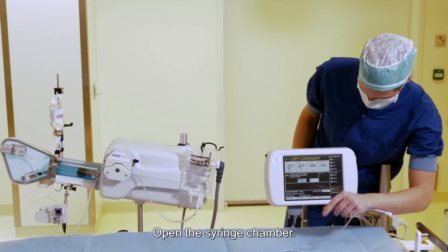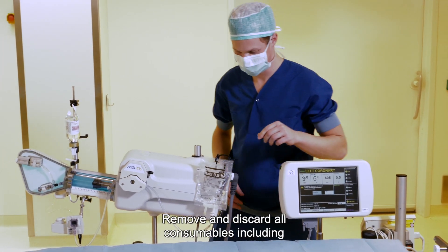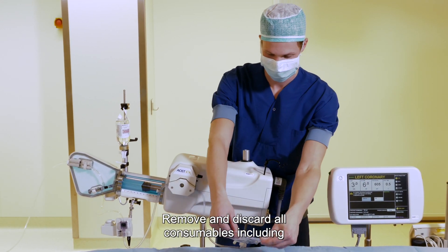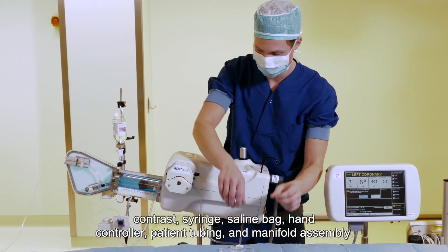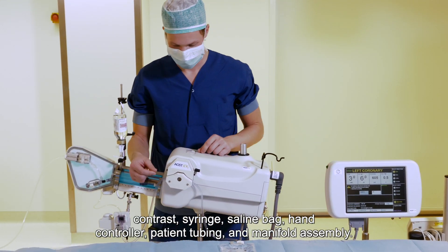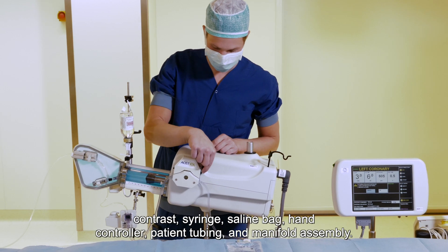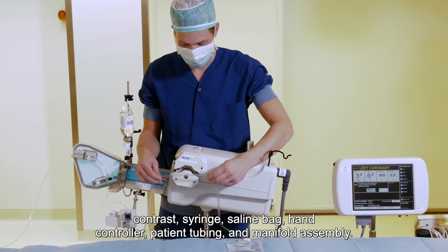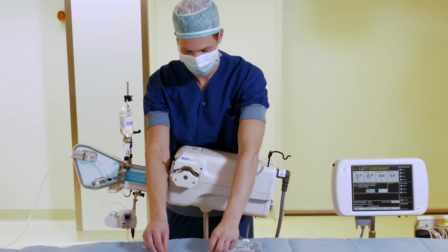Open the syringe chamber. Remove and discard all consumables including contrast, syringe, saline bag, hand controller, patient tubing, and manifold assembly.